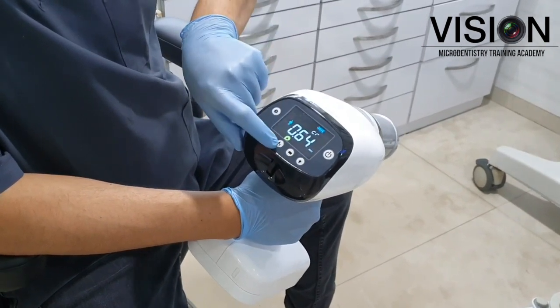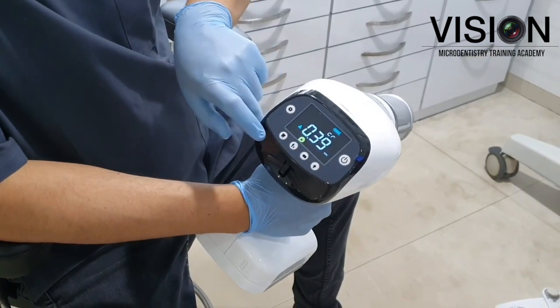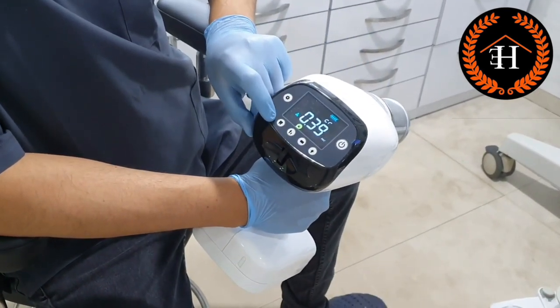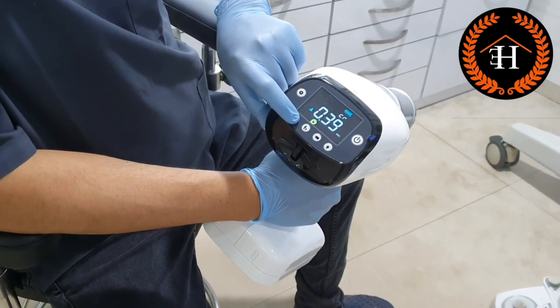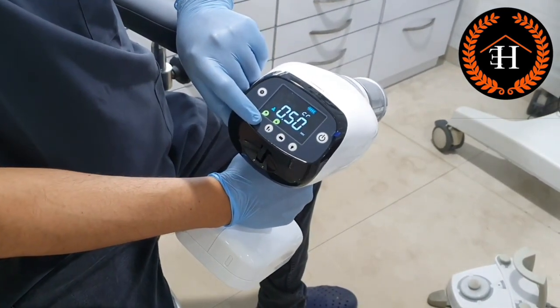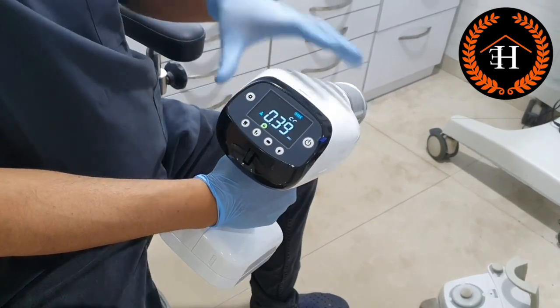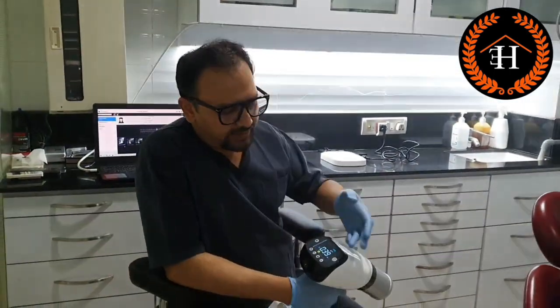There is also an adult and a child mode. The adult mode is denoted by one icon, and pressing the second button shows a small icon for child mode. The first button, which shows a molar, is for the presets available with the machine. You have settings for lower molar, bite wing, anteriors, as well as upper molars. Depending on the tooth you are going to take the radiograph for, you can select the preset settings.